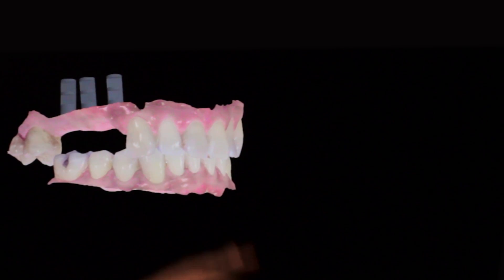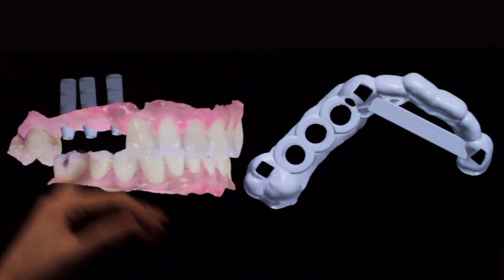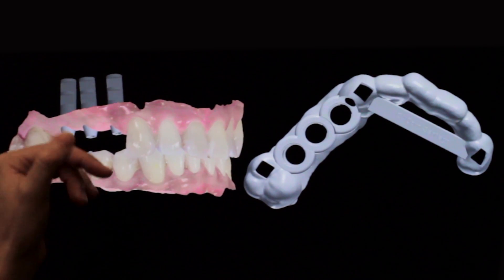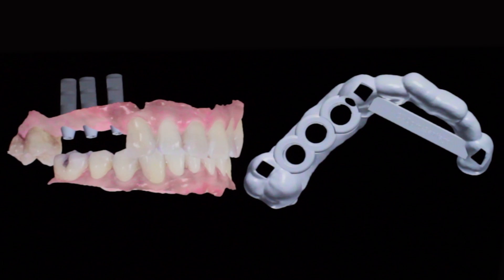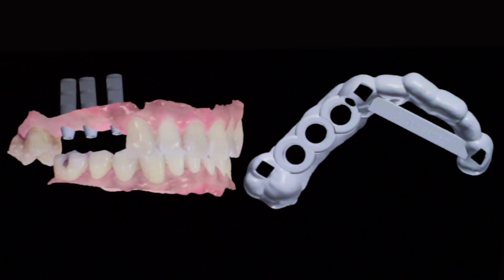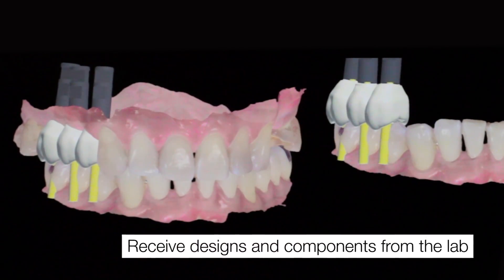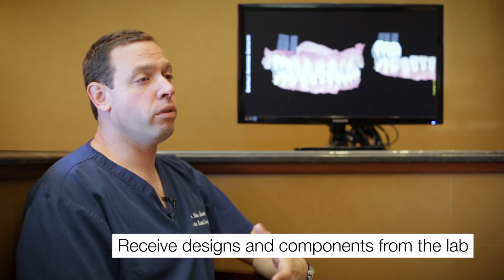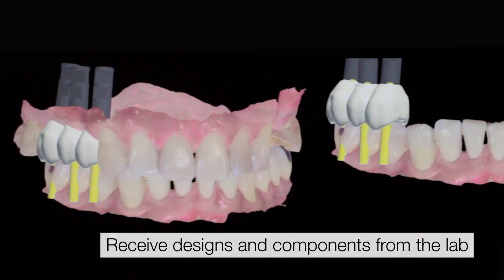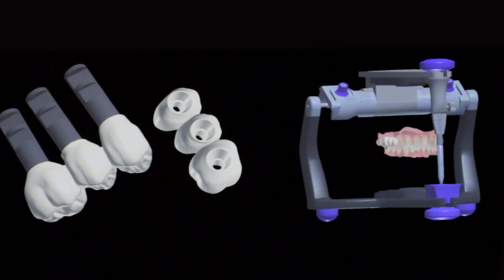The major advantage is that with these different data sets — the patient's upper jaw, the patient's lower jaw, the virtual implant position prior to surgery, and the restorative components we want to use — all of that comes together so that we can go ahead and design a screw-retained provisional, or even a provisional of the precision of where the implants will end up, giving us a very nice way of immediately providing a restoration for this patient.